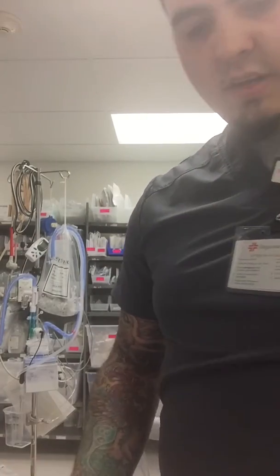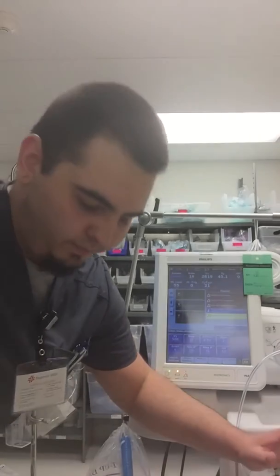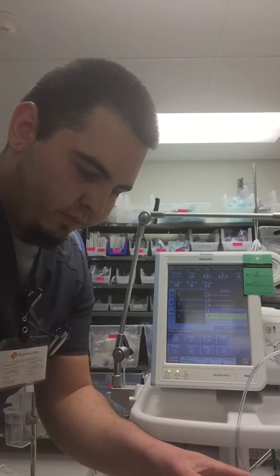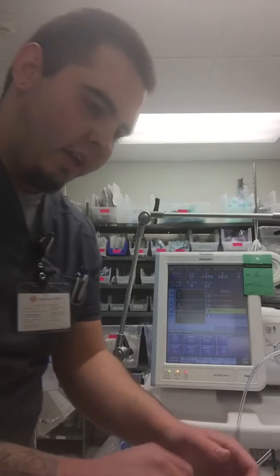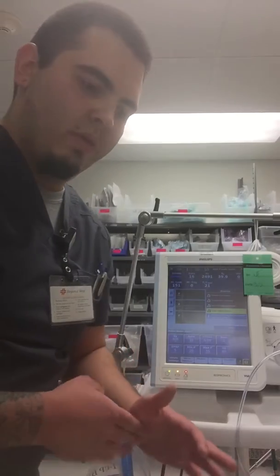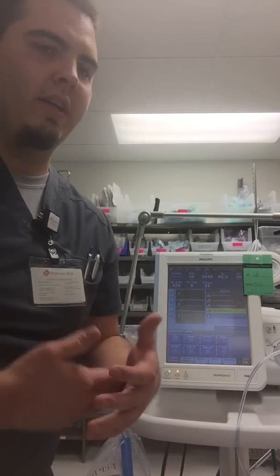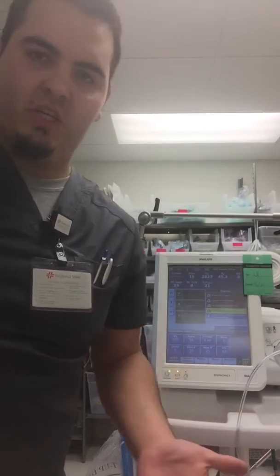And then in terms of cuff cares, you can change the cuffs when they are soiled. However, you're going to check the cuffs, you're going to look at them, you can check the cuff pressure. There's a way to measure it. You can plug it in and it'll measure what the cuff's at. You can inflate it or deflate it as needed. That way there's no hyperinflation, there's no damage being done. And so you can increase it, that way it's not deflated to a point where it's not benefiting the patient in any sort of way.